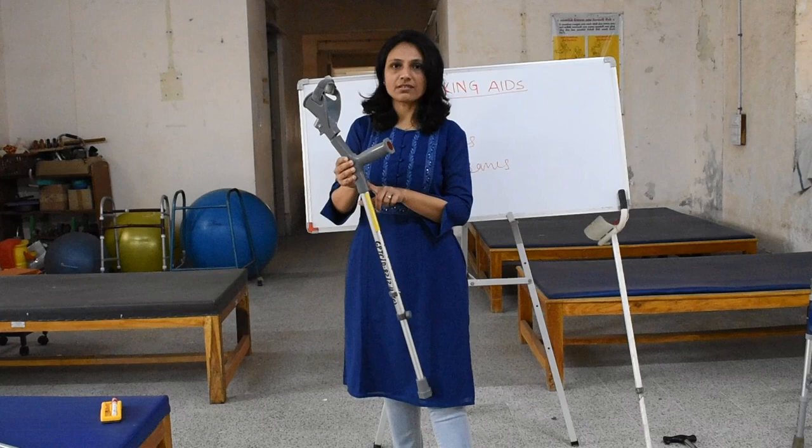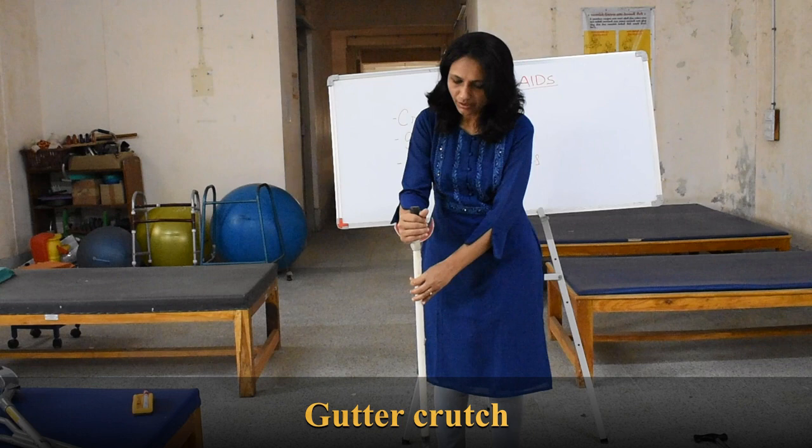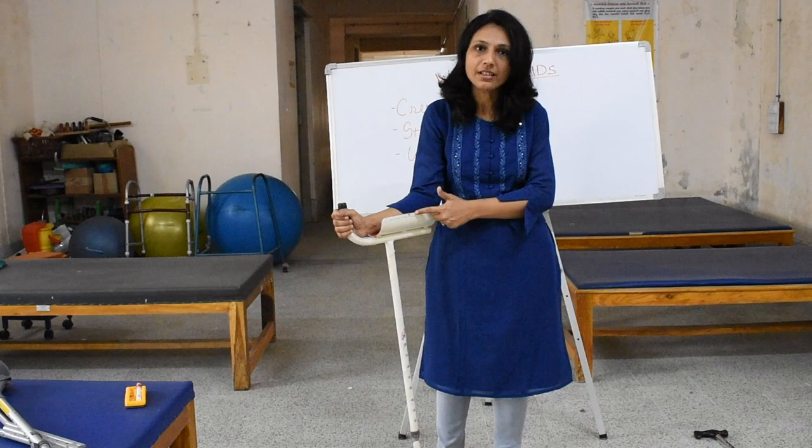The third type of crutch is the gutter crutch. This is the crutch which is used by persons who have either pain in the wrist or the hand and cannot use the hand for weight transmission. So they are going to use this gutter crutch.